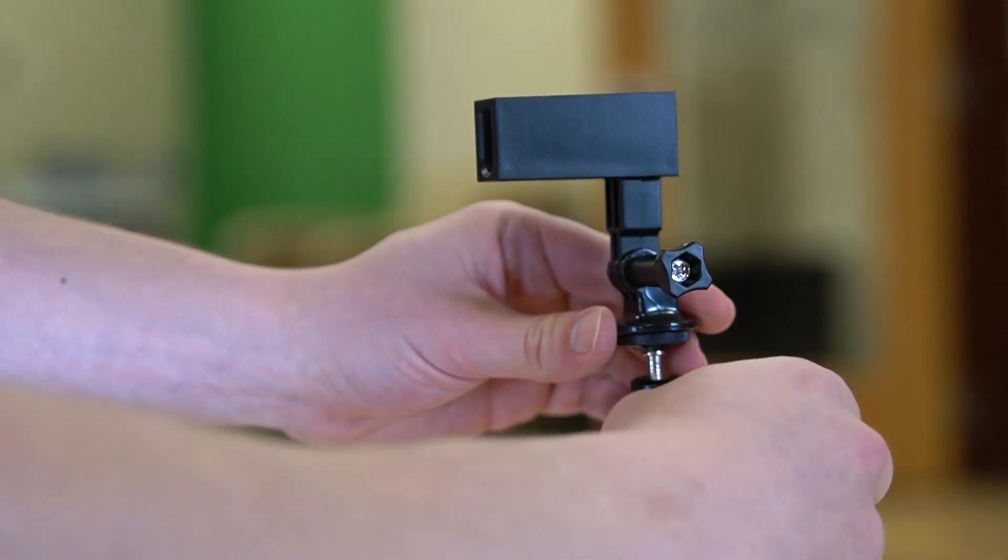The first thing to do once you receive your OrCam Read Stand is take it out of the box and assemble it. I already went through this process successfully, but Corey has never done it before — so I thought it would be fun to test his ability to put it together as someone who's blind, and my ability as a sighted person to give him instructions. He brought his tool belt — a circular saw, a level, needle nose pliers — but this is a tool-less assembly. Everything you need is in the box, everything screws together, and there are instructions included. But of course we are modern men and we do not need instructions.